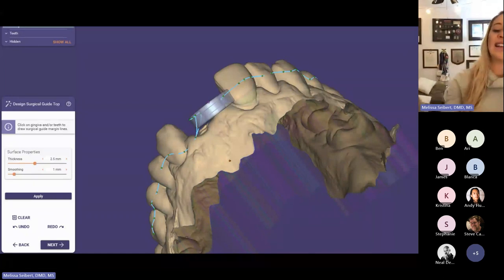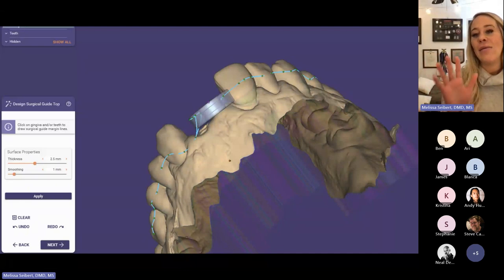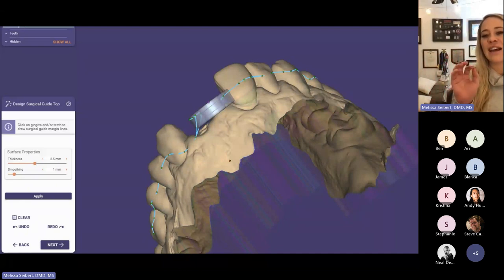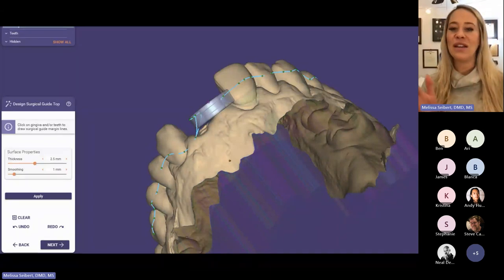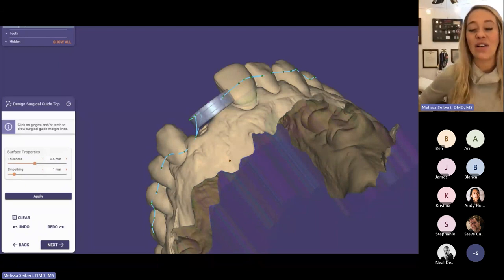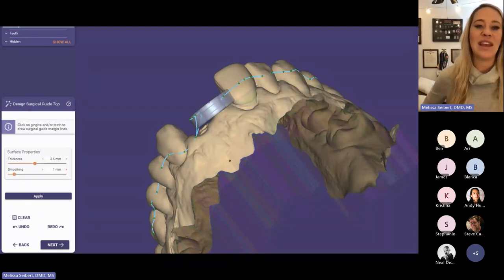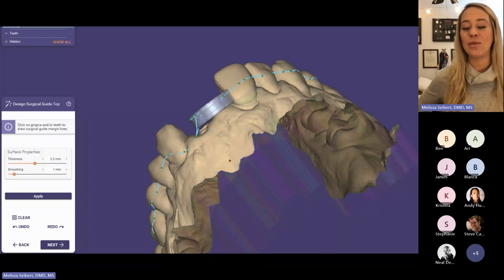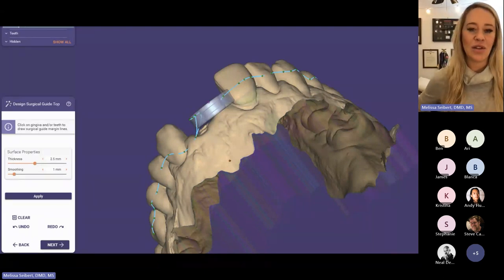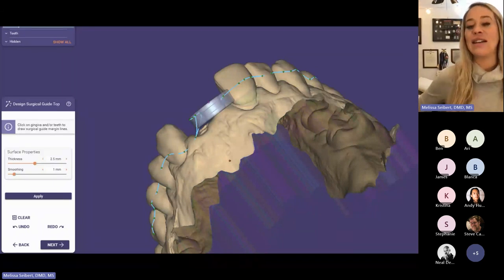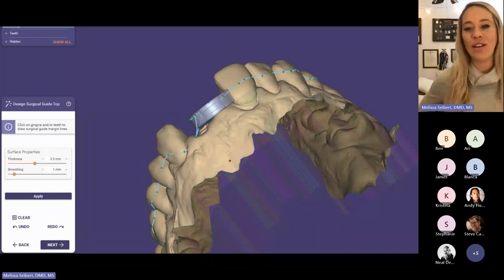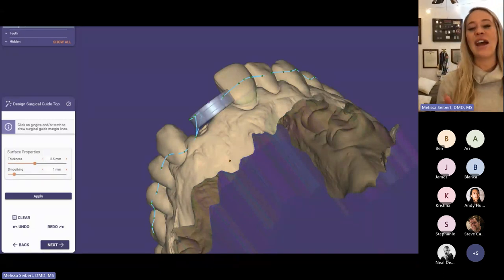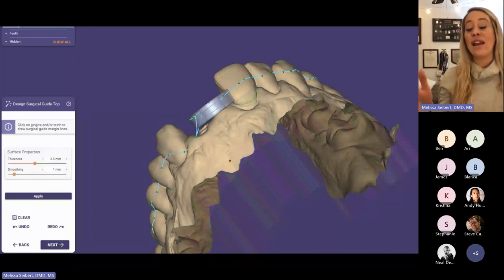Now I'm going through and designing the guide itself. There are a few different ways to design this guide, but the way I designed it is beneficial because I can actually irrigate under the guide itself. Anecdotally, I've heard stories of providers who felt their implant failed because they weren't able to get irrigant down onto the implant. I don't know exactly if that's truly why it failed, but you certainly don't want the bone heating up. Linkovicius, in his recent textbook Zero Bone Loss Concepts, cites bone overheating as a reason implants might fail. You want to be able to get irrigant down onto the implant and your twist drills as you're placing them. This is something the software enables me to do.